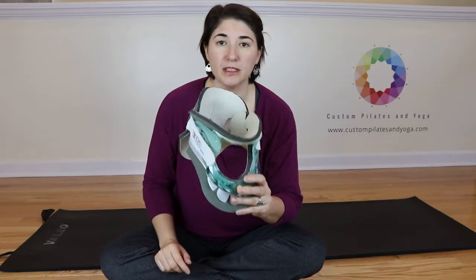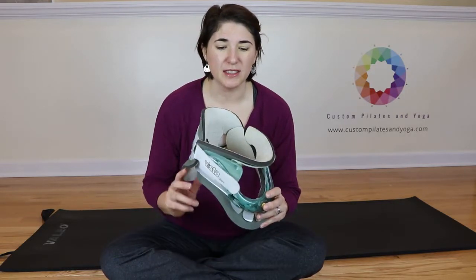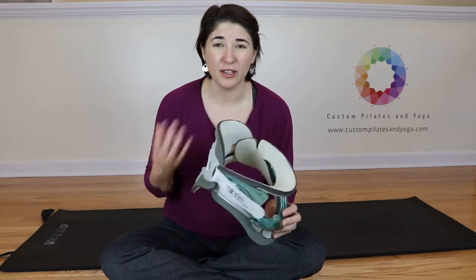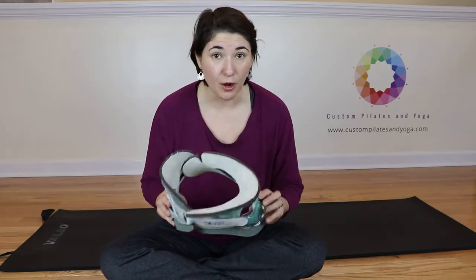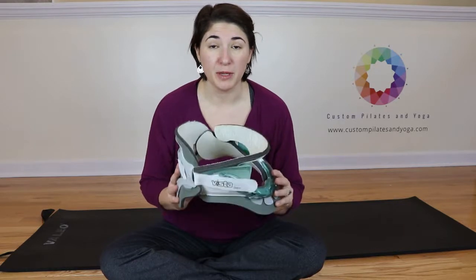Now when you get sweaty, when you get filthy, these pads will get dirty or they'll just kind of feel uncomfortable on you. And it's really important for you to know right now — they're replacement pads.